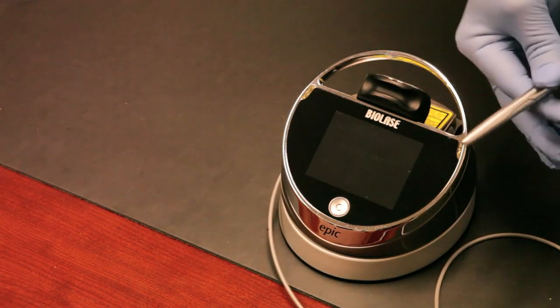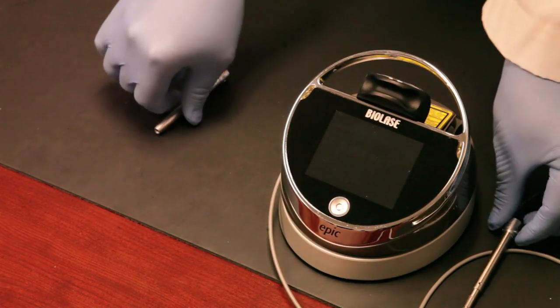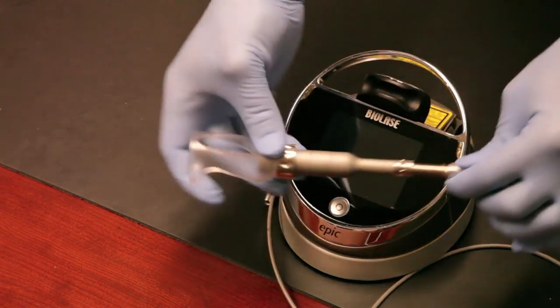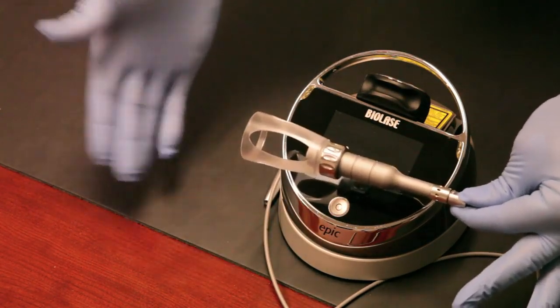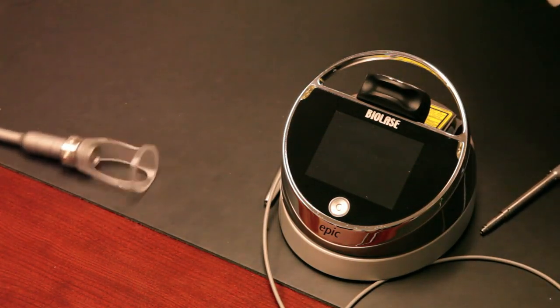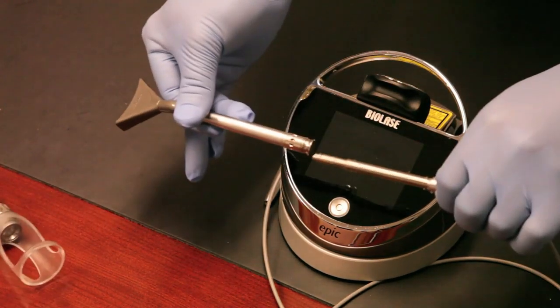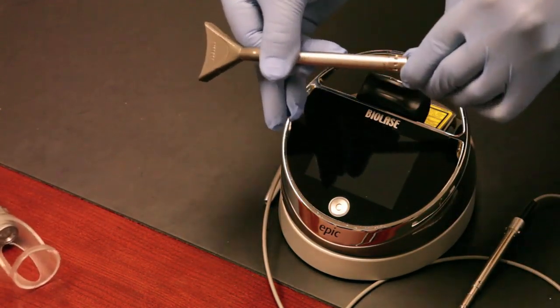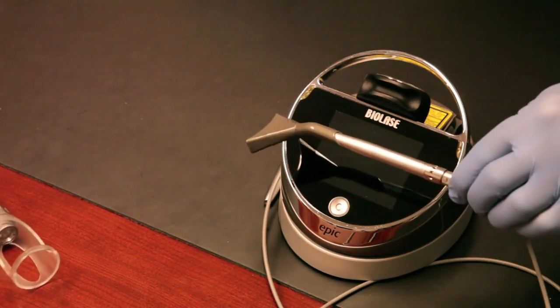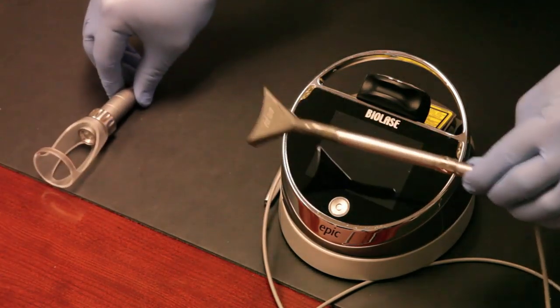Now I want to show you the whitening handpiece and the deep tissue handpiece. Here's the deep tissue handpiece — you can see it slides right on just like the surgical handpiece. The whitening handpiece is much the same — it also slides right on. The whitening handpiece can also be used for pain therapy, but we recommend using the dedicated deep tissue handpiece instead.